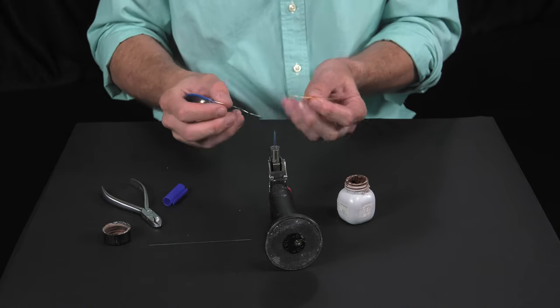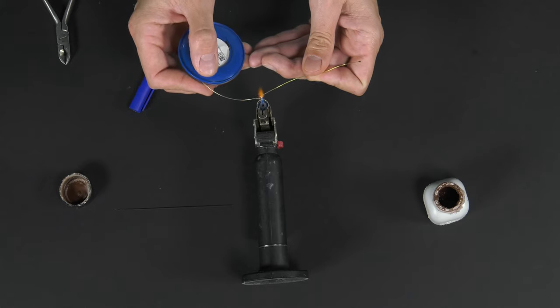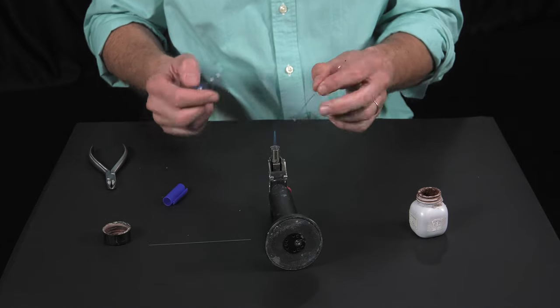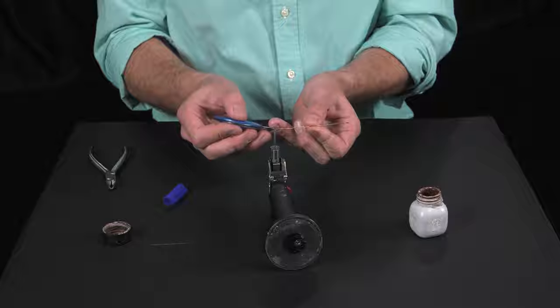We now heat the silver solder in the flame, trying not to overheat the brass. We now have one end done.